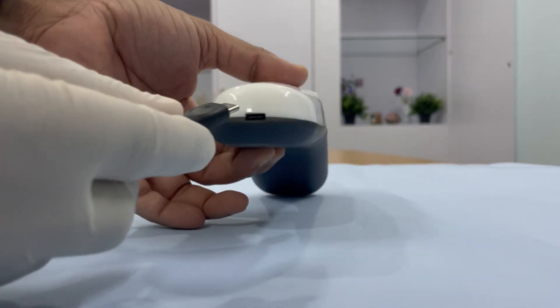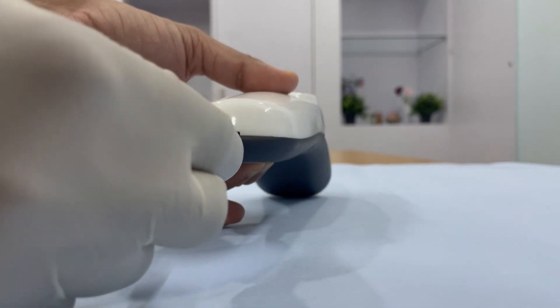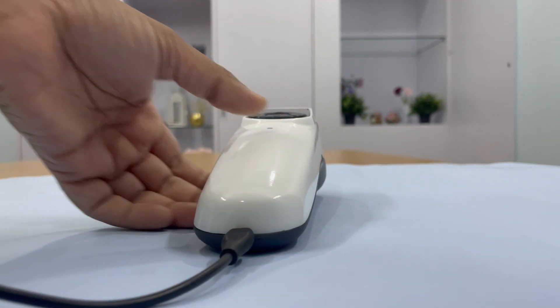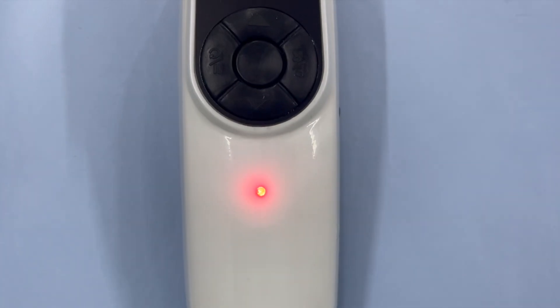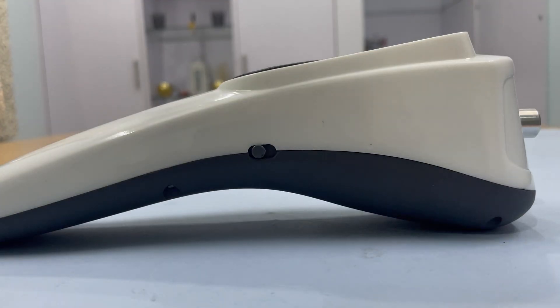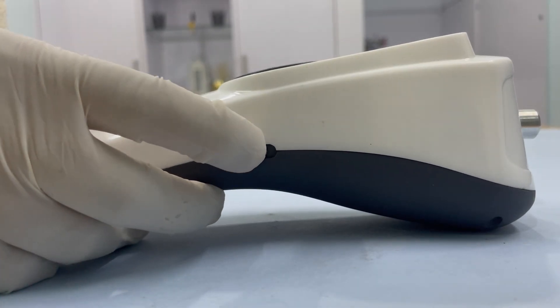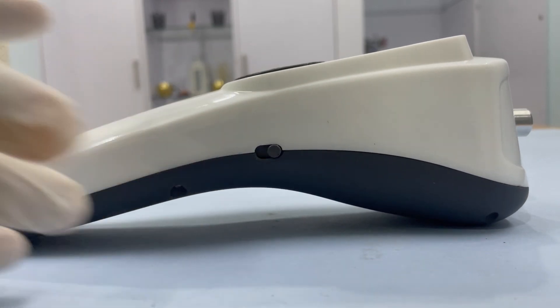Before using the VibraSense Plus T device, ensure it is fully charged. To power on the device, slide the switch on the side to the on position.